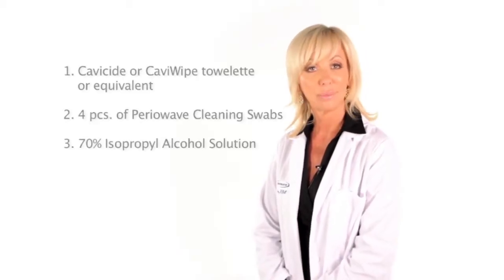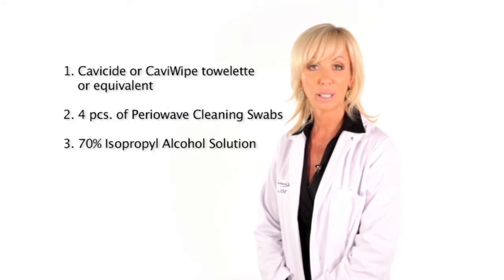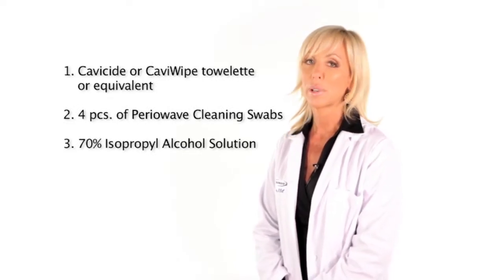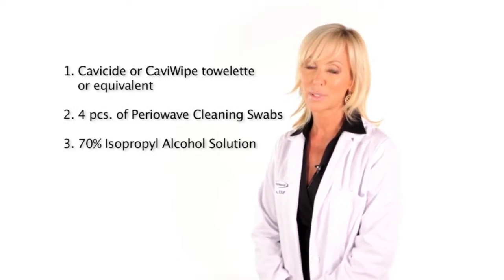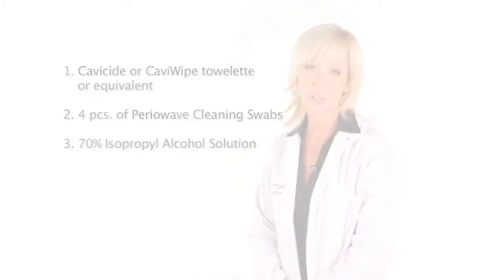To clean and disinfect your PerioWave handheld laser, you will need the following: Cavicide or Cavi wipe towelettes or equivalent, four pieces of PerioWave cleaning swabs, and a 70% isopropyl alcohol solution.